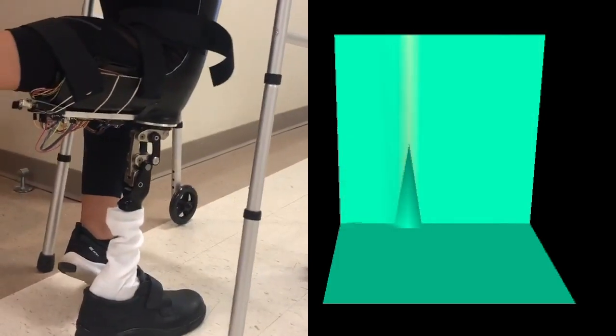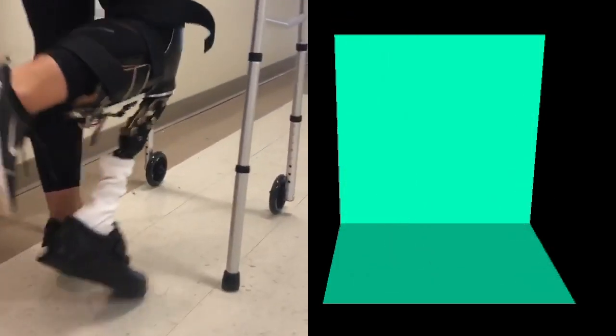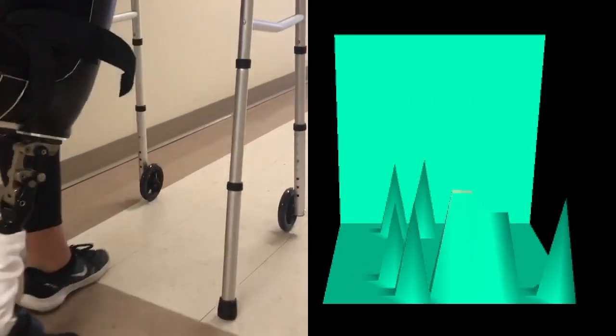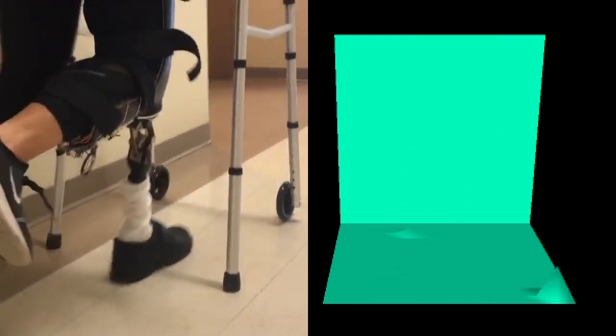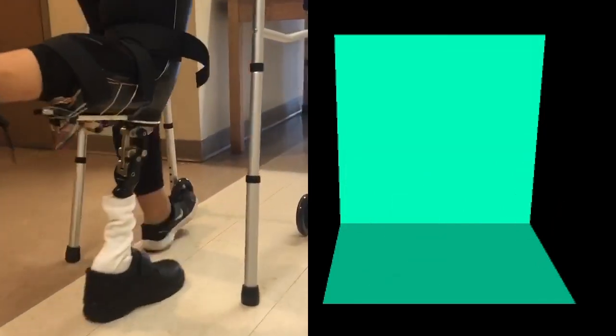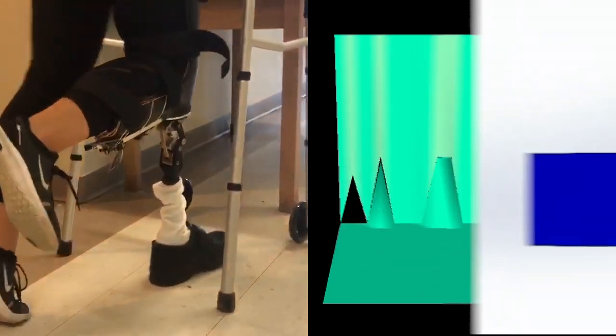The video on the left of the screen shows Sarah using the prosthetic leg simulator with our product integrated into the socket. On the right side of your screen is the 3D data display, showing what areas of the prosthetic are under pressure and the magnitude of the force in each of those locations. In order to ensure our estimates are accurate, we applied the location and magnitude of forces data gathered from our group member walking with the socket and compared that to a SOLIDWORKS simulation with varying forces during walking.